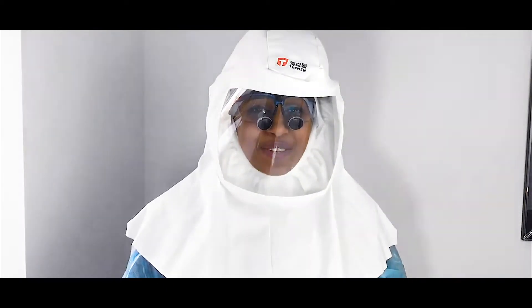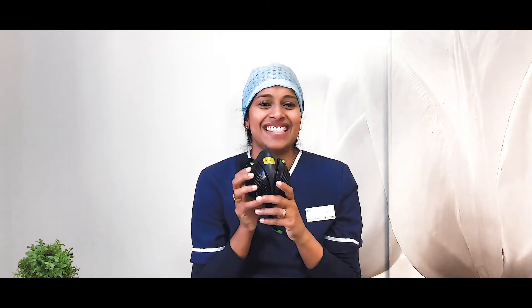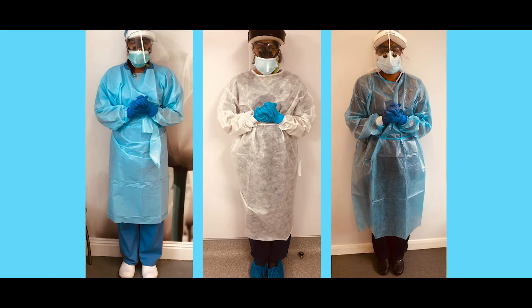The equipment itself is expensive and the filters are an ongoing cost — something to think about. This has been a roundup of all the different respirators I'm familiar with. I have no affiliates, so I'm not advocating one over another. This is so you get a feel for the different types and can assess what suits you cost-wise and effectiveness-wise. The hood type with powered air was the most comfortable for me, but it's quite expensive. My own current setup is the stealth mask with loops and a full face shield, worn with a gown and all other donning PPE.